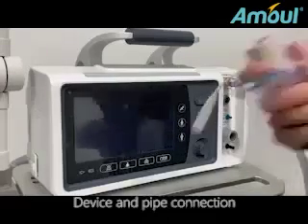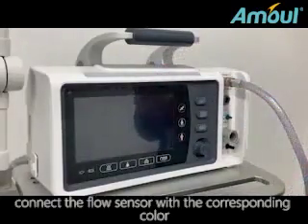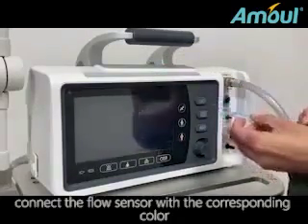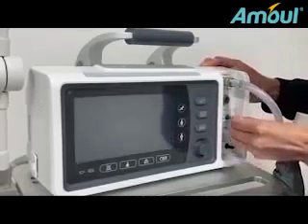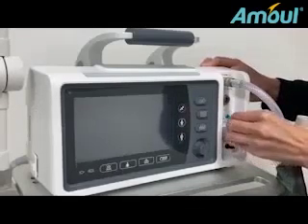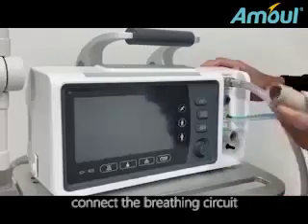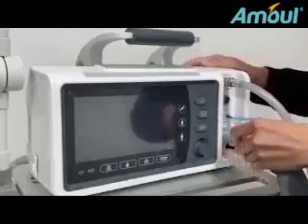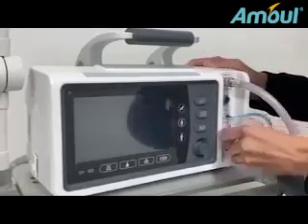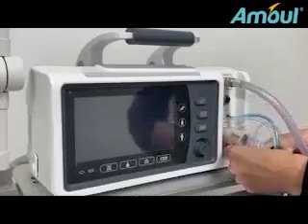Device and pipe connection. Connect the flow sensor with the corresponding color. Connect the breathing circuit. And connect the PEEP circuit.